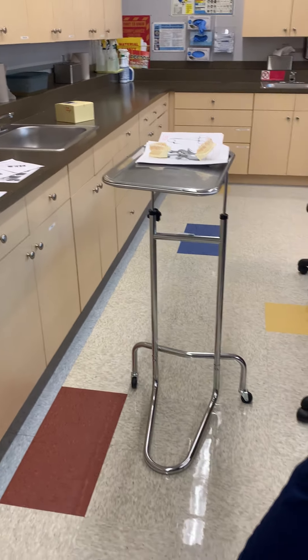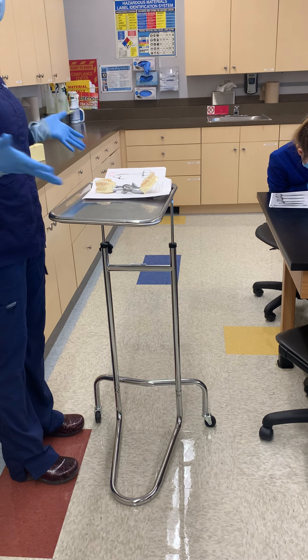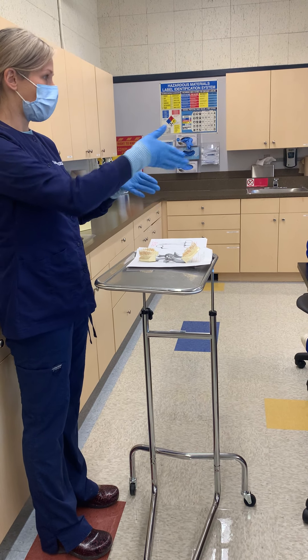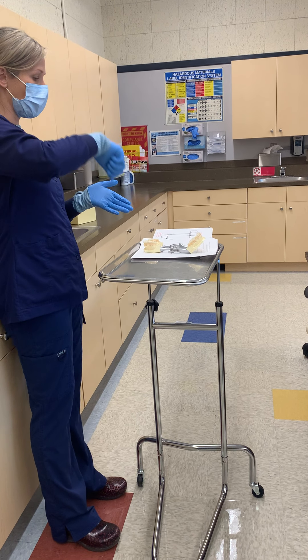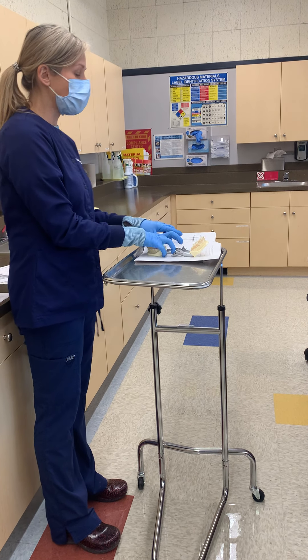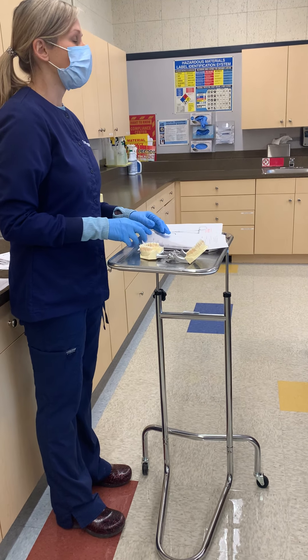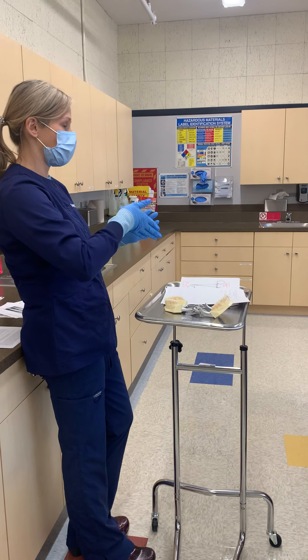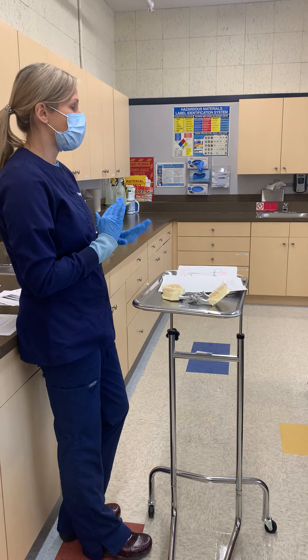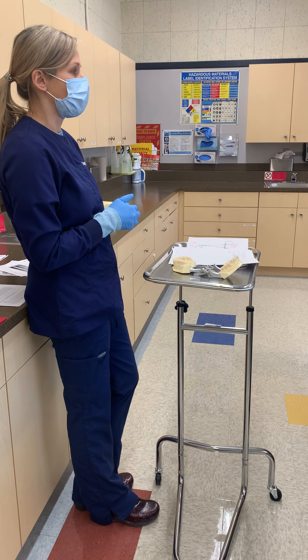Regarding the difference between the tissue retractor and elevators: elevators are meant to break a seal — they're not trying to be delicate. They're actually going in and removing the bond between the tissue. The periosteal elevator is meant to go in and break bonds between the tooth and the tissue, whereas the tissue retractor is truly just meant to hold something, to retract it out of the way without causing any kind of change or damage — meant to cause no trauma.